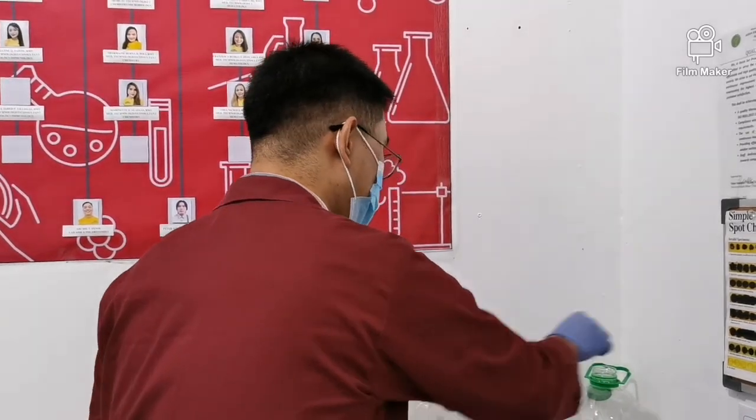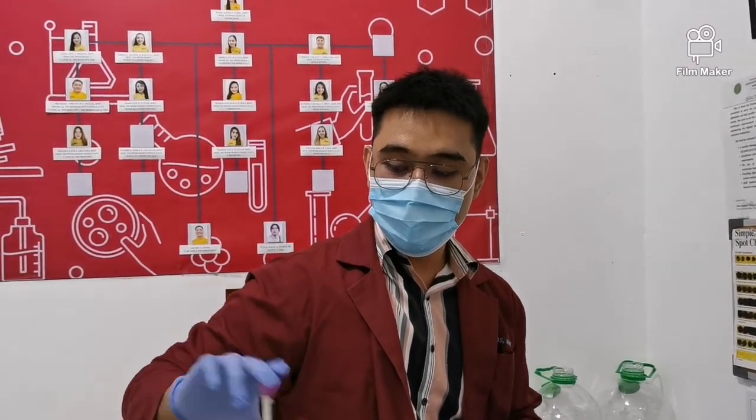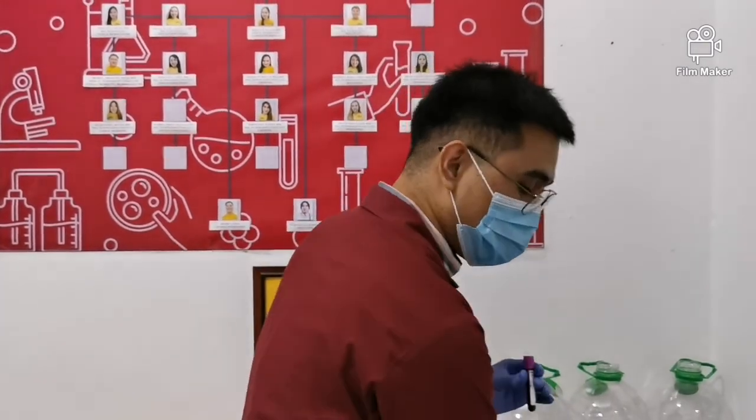And ayun, mapapag-aralan nyo siya next sem, yung proper na mixing. Kasi each tube has their different mixing. And our EDTA requires 8 mixing. 1, 2, 3, 4, 5, 6, 7, 8. Okay, dapat pa-infinity yung flow. Hindi ganon. Because you might rupture the RBC or you might lyse the RBC.